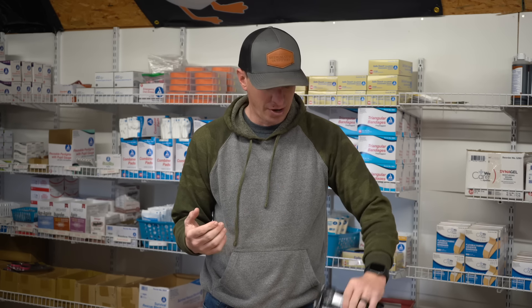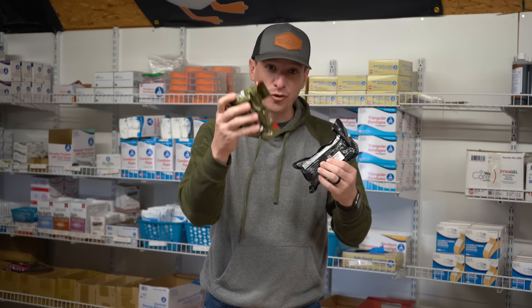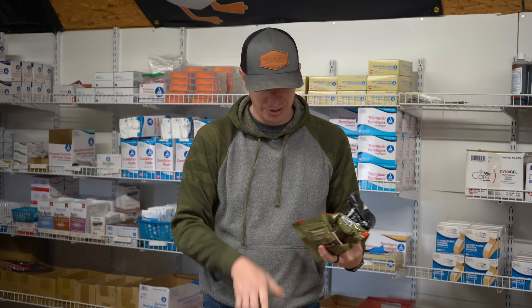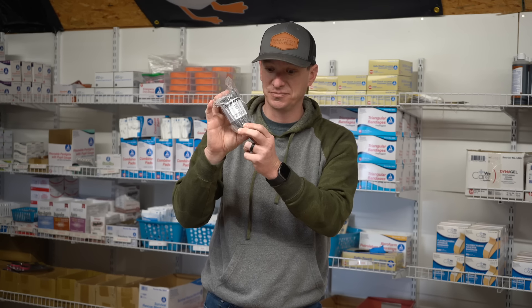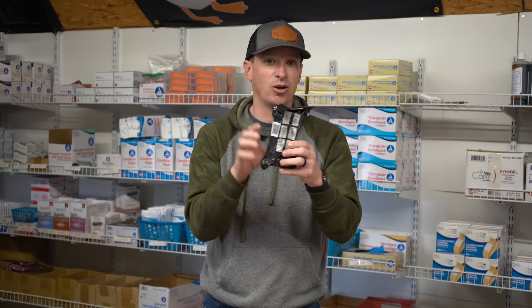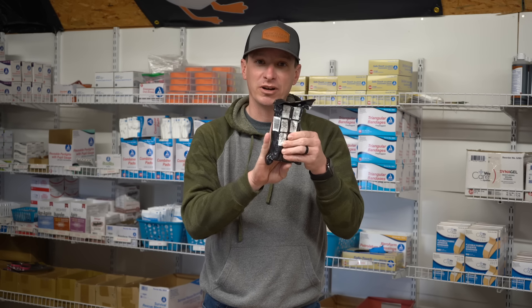With pressure bandages, it's wide open based on your preference. You could go from an emergency bandage — commonly known as the Israeli bandage — to a NAR 4-inch. They make a 4-inch in both. There's also a flat 4-inch option. The Olaes comes in 4 or 6 inch. You could also do a very simple elastic wrap, like an ACE bandage. In my IFAK I only keep one pressure bandage, but if you wanted to add two — one is none, two is one — at least have one.